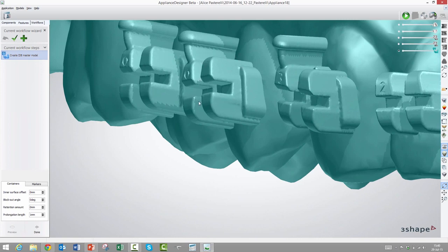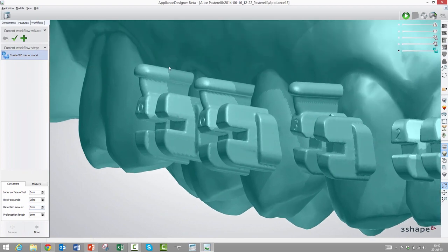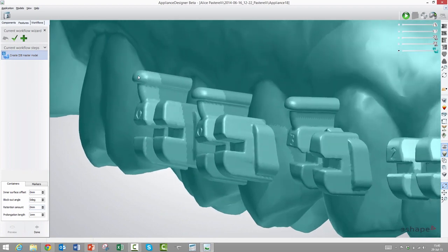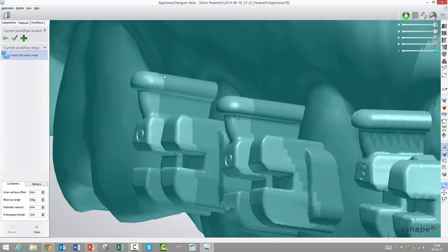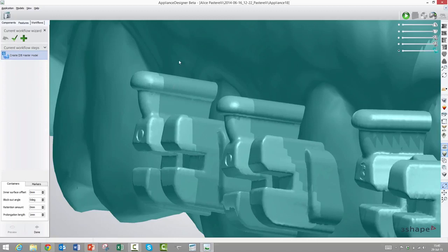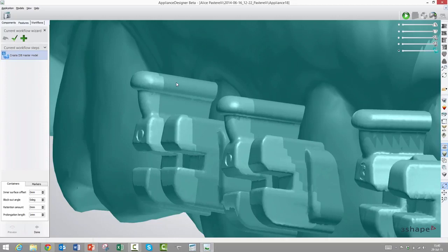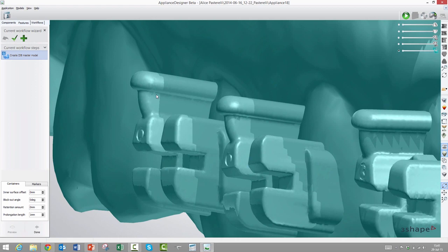That is to accommodate friction questions. So if the material is very hard or just has a high inherent friction, then we can either make the walls tapered or make this entire container a bit smaller. Retention amount is actually a pretty cool feature. If you remember how the original hook looked, of course there was a ball and a small pin going in here. If we add a retention amount, then it will reintroduce a little of the cavity that has now been filled out by this material.